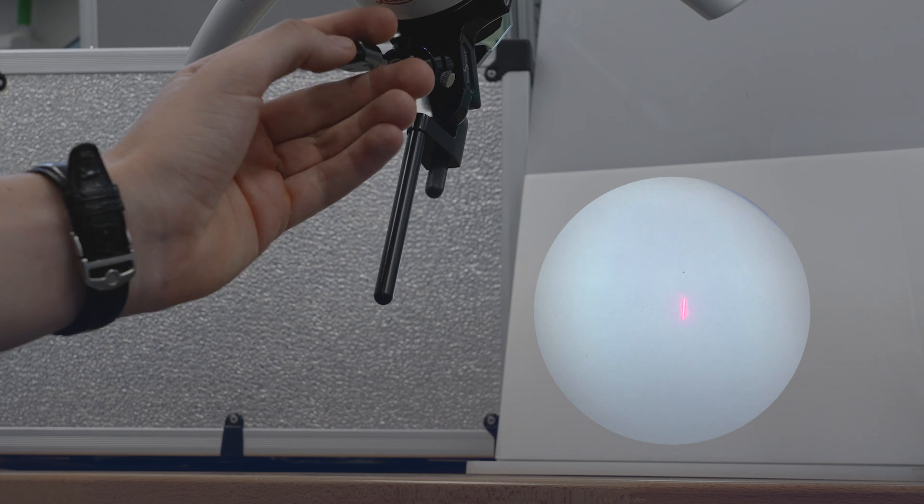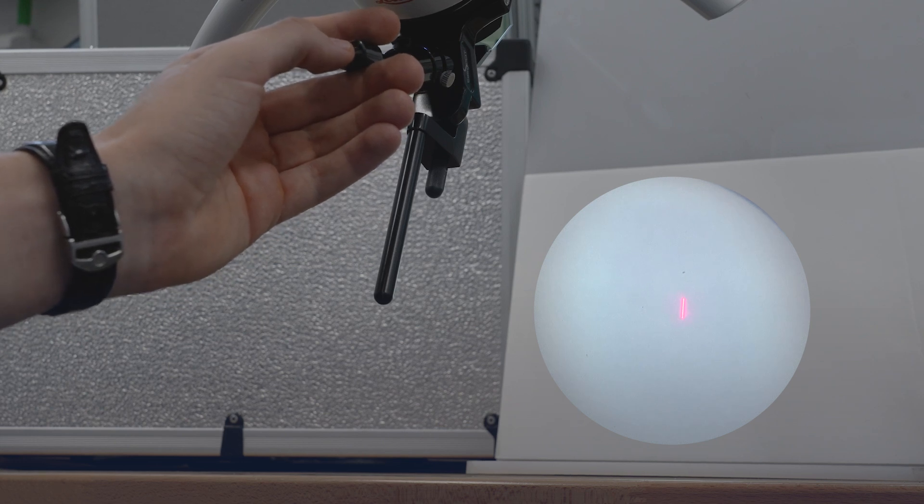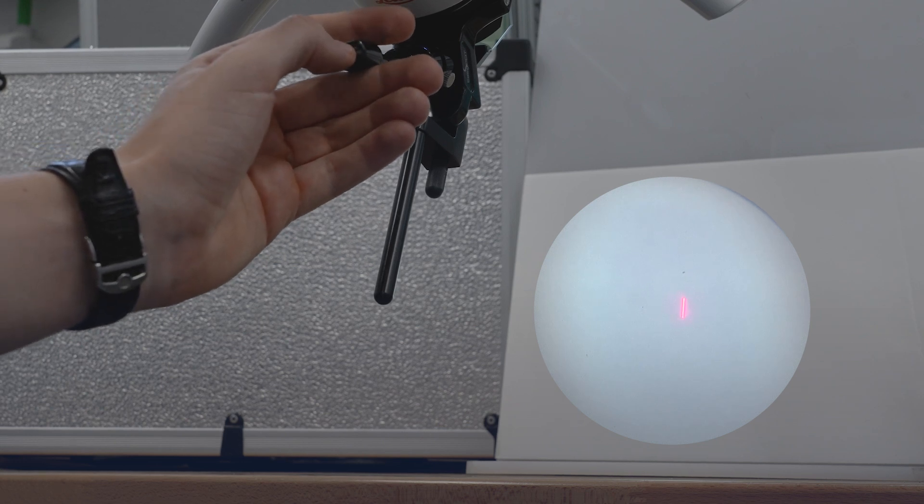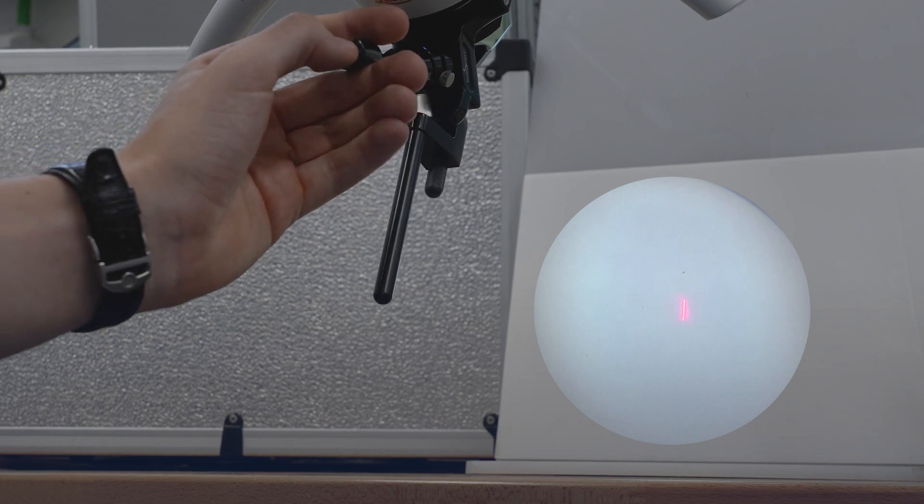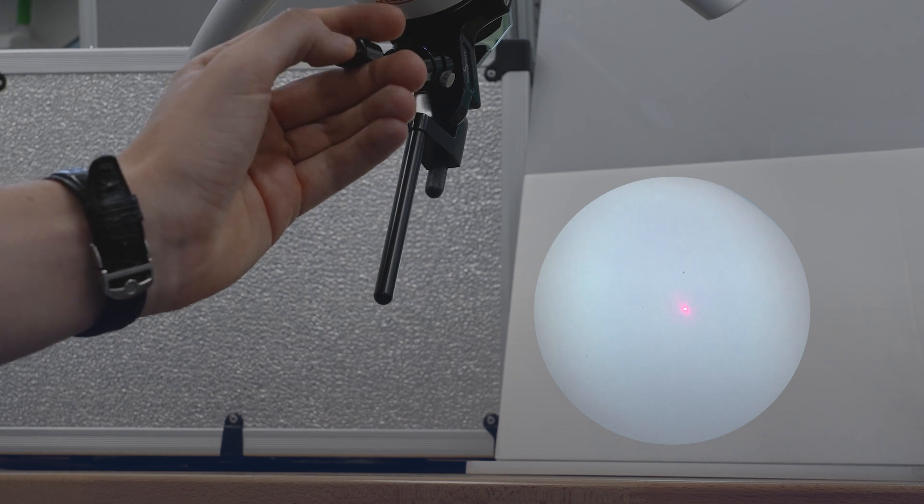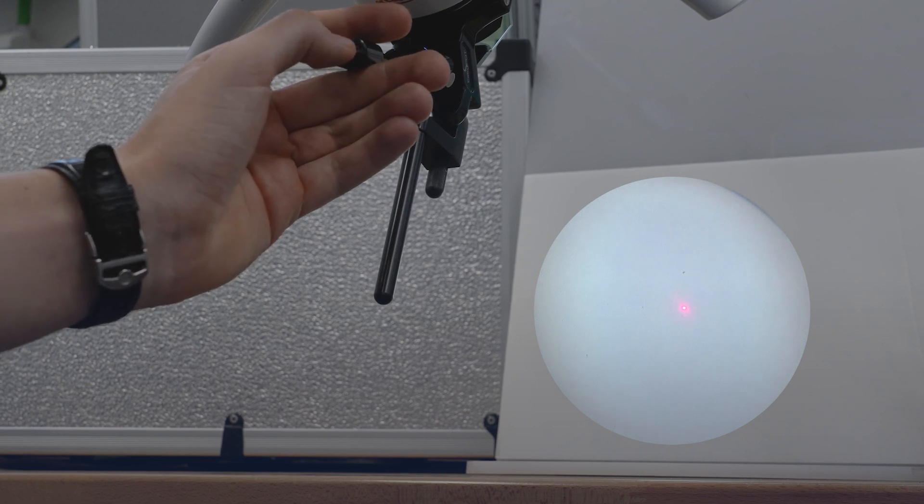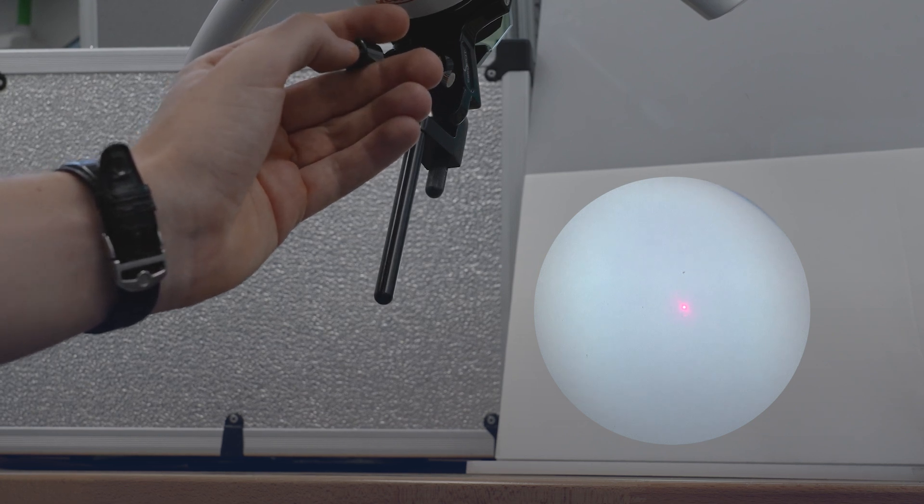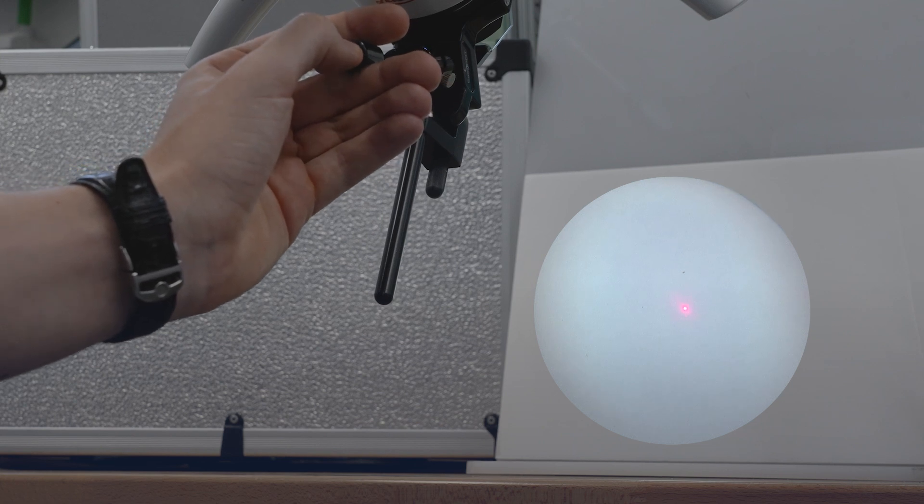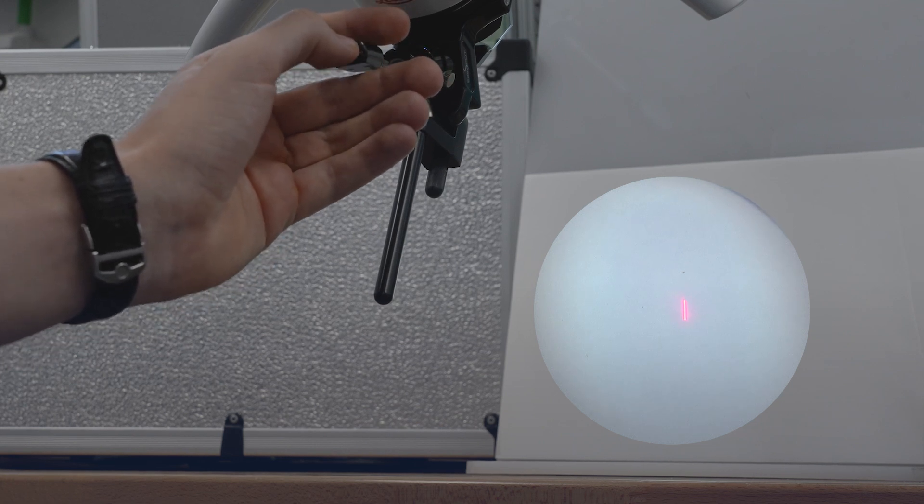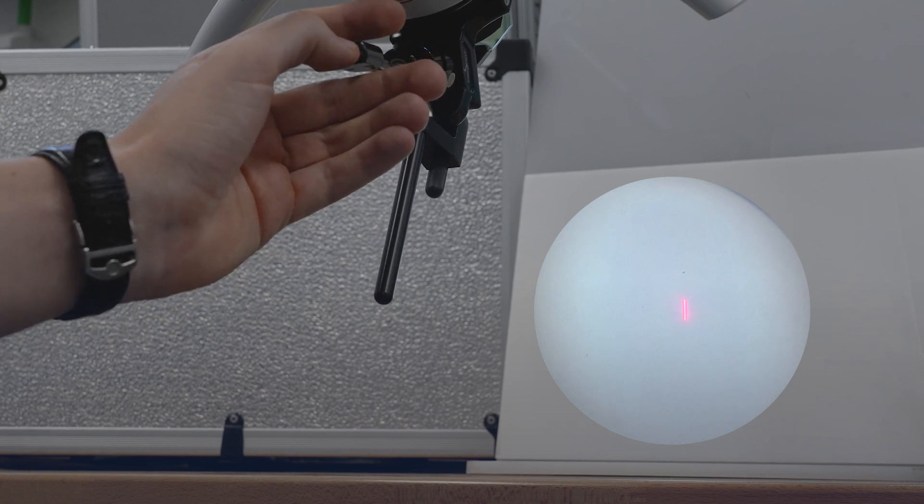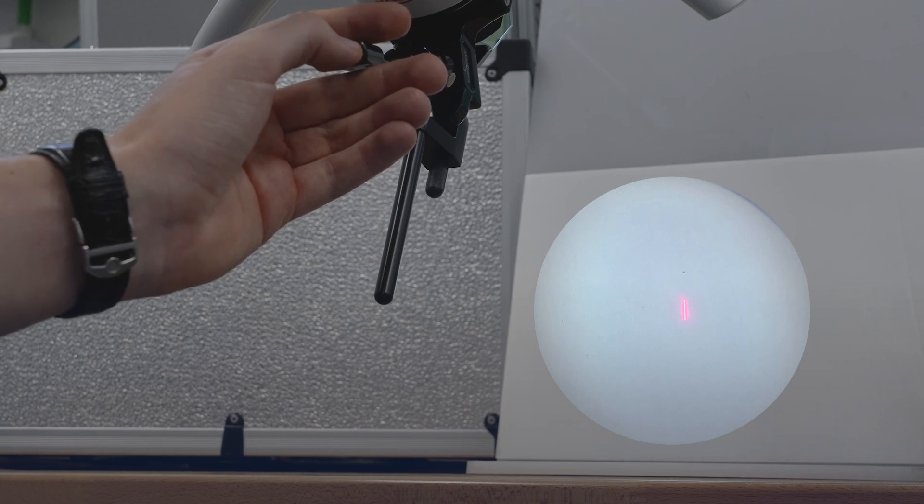The third option is the ability to switch between Scan-Off and Scan-On modes. Scan-Off means that I want to use a single point, disabling the scanner. On the other hand, Scan-On enables the scanner functionalities, allowing me to use all the different shapes as needed.